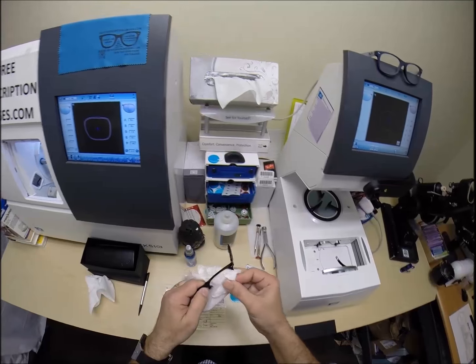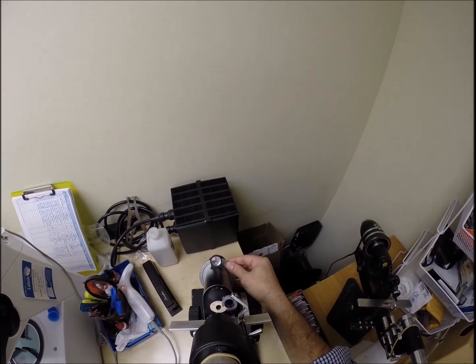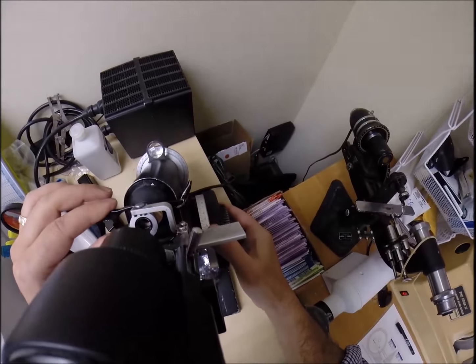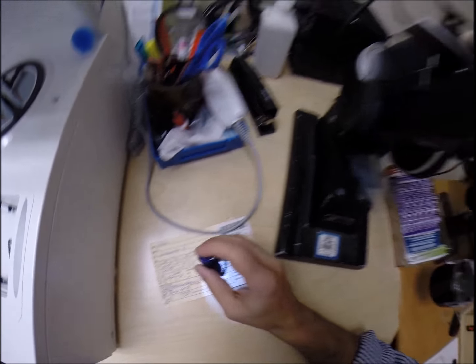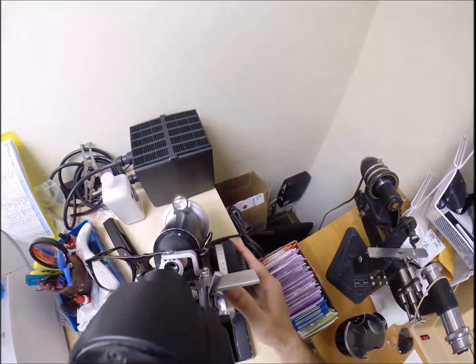Now let's take the lens out and see if it snaps into the frame easily without causing the frame to stretch. I put it in at the outside corner, and the reason why I push down at the nose is that this is the thickest portion of the frame - if I'm going to apply any force, it's going to be at the thickest portion. The block popped right off. The water that cycles during the machinery comes through here; there's a pump that pumps water through these lines, and this is a filter that catches the residue from your lens as it's being cut away.